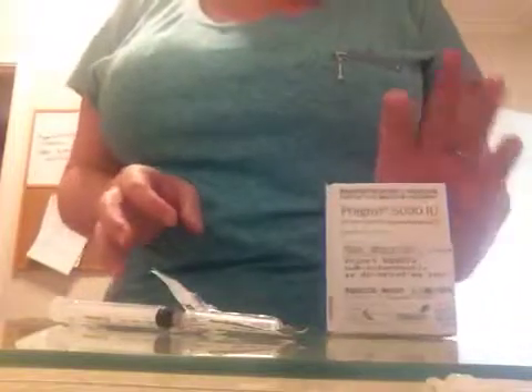I just pop the lid back on — everything's done. That was short and sweet, I hope, for you guys. This is the box it comes in and it's all in here. These are the instructions. Thank you, enjoy.